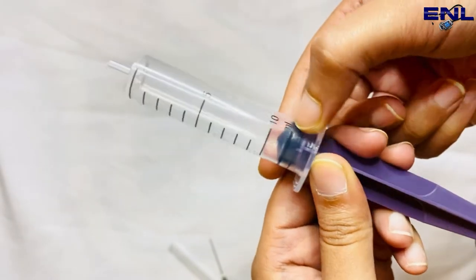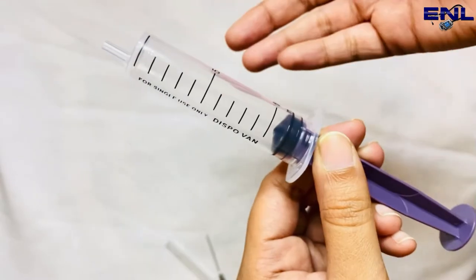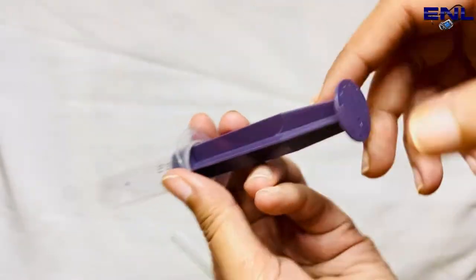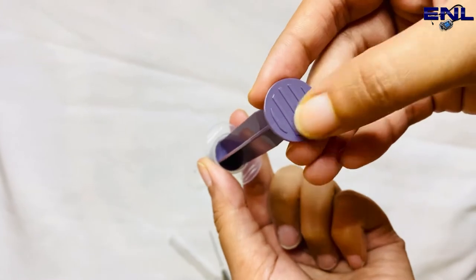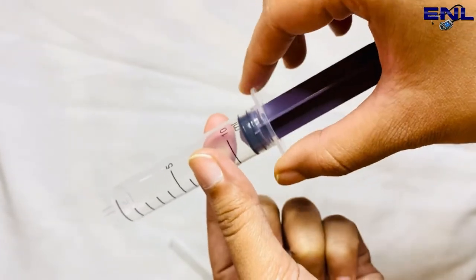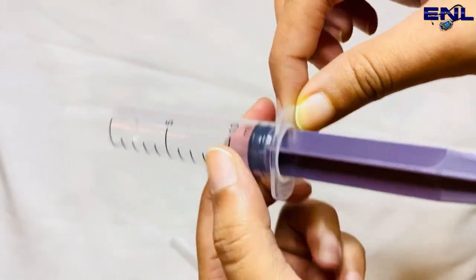The calibrations tell us how much dosage we have taken. Like this is a 10 ml syringe, so we get the idea of the calibration marks from 5 ml up to 10 ml. And then this is what we call the flat end. And these are the top collars.